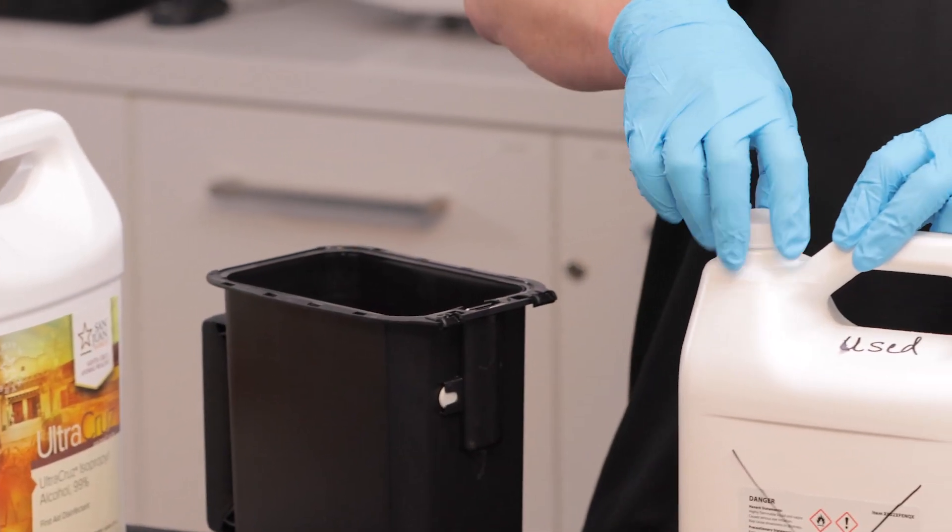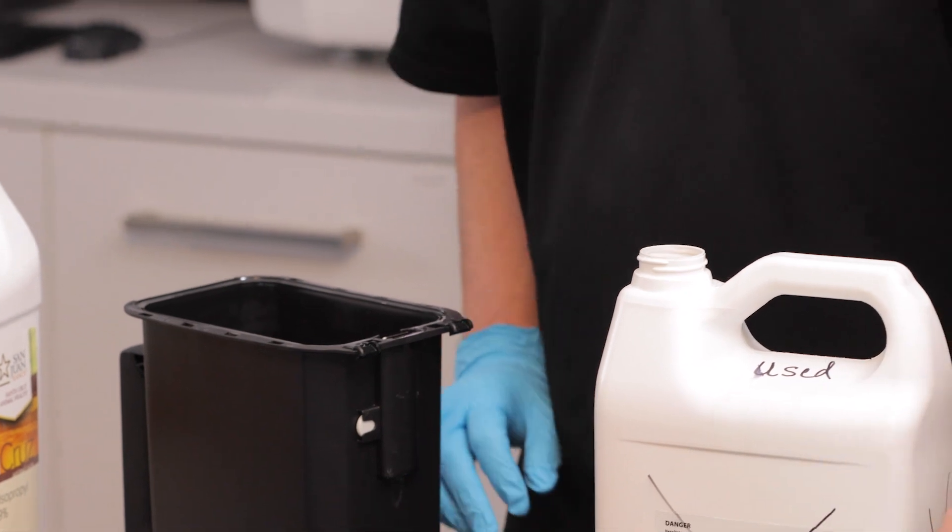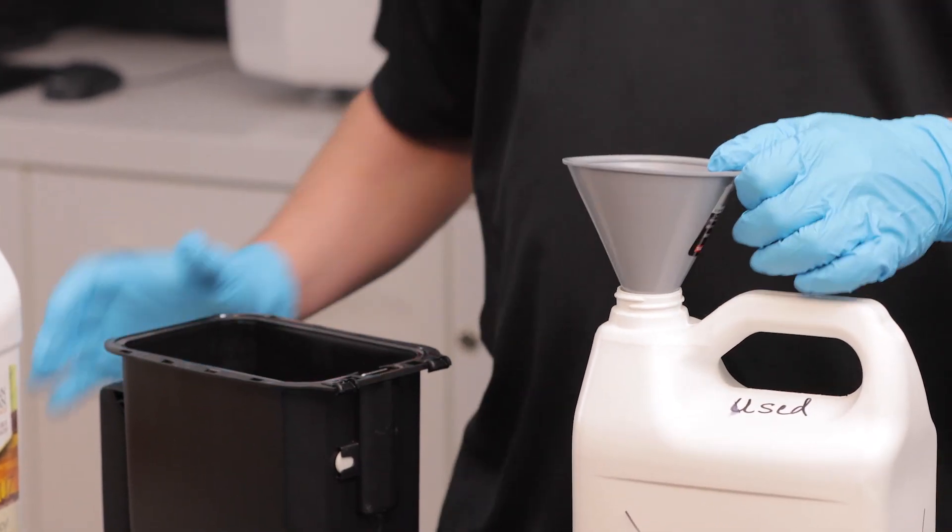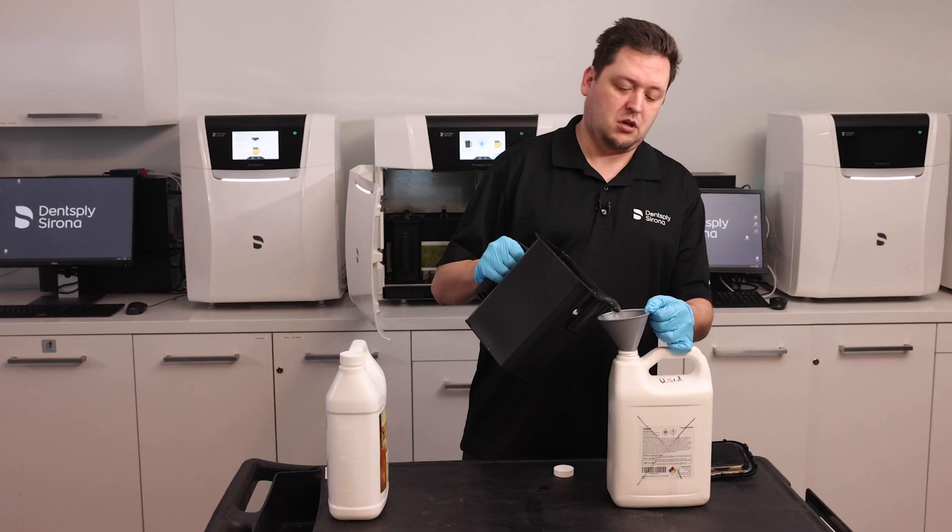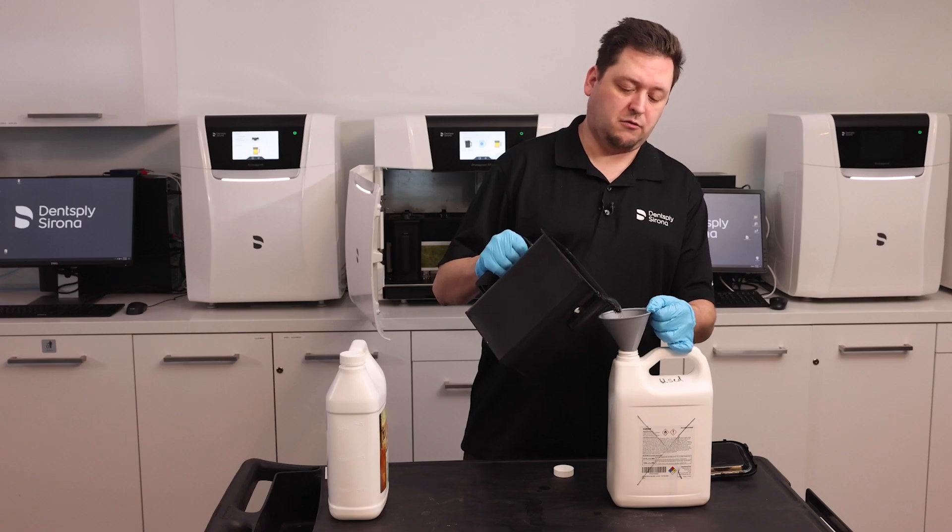Detach it, and I need to dispose of the alcohol. I'm going to put it into its original container, now marked used so I can tell the difference. I'm going to carefully pour off the alcohol inside.